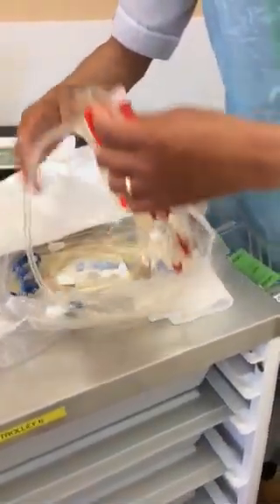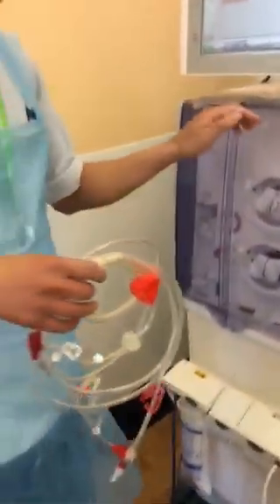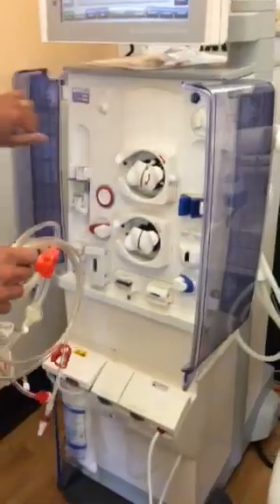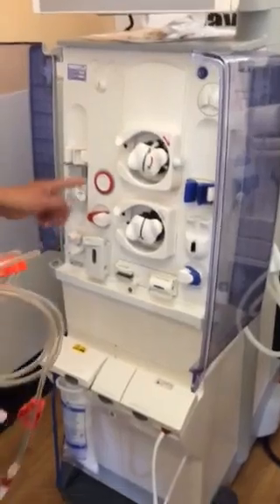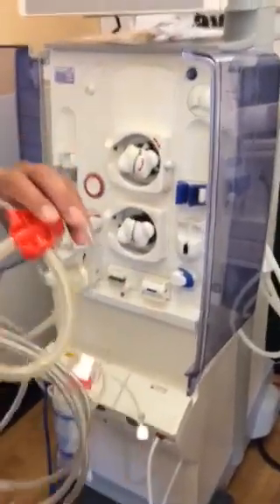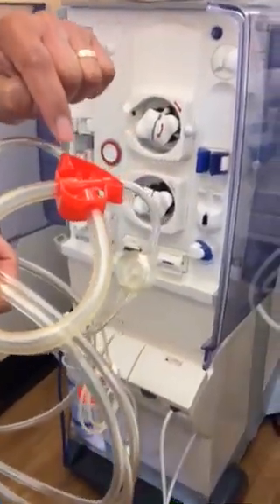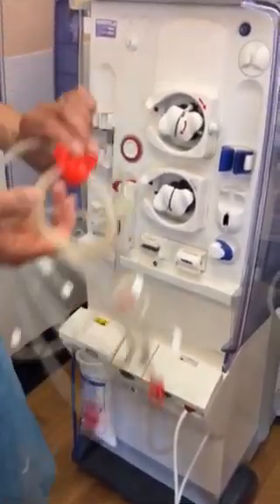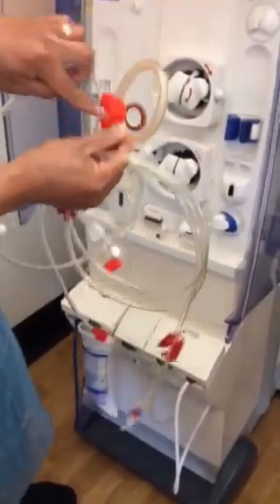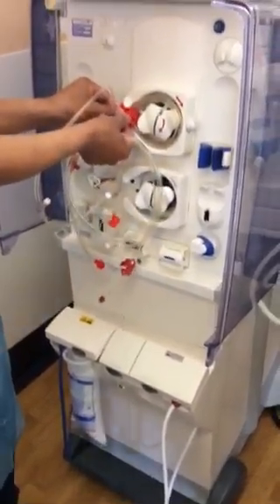Okay, take the red first — the red line. Take it out, this one. So you see this one — red. The red, you will see the marking for the red lines. You will see there is a small — what do you call this one — like a spike, something. There's a sensor on it over there, so you just push it with the sensor. You won't get loose because the loop is here. Just put it here like that, push it, and then there's a beep sound.